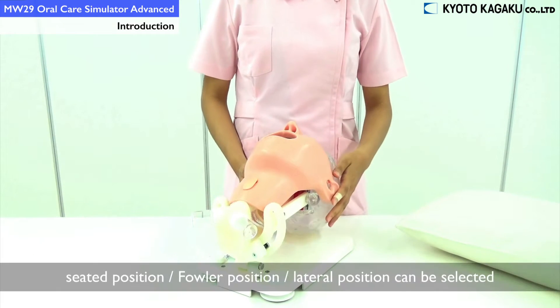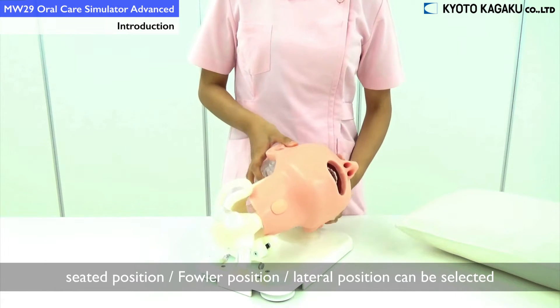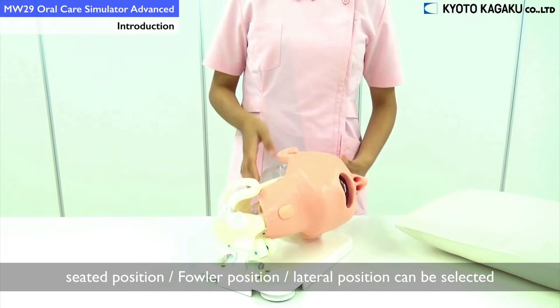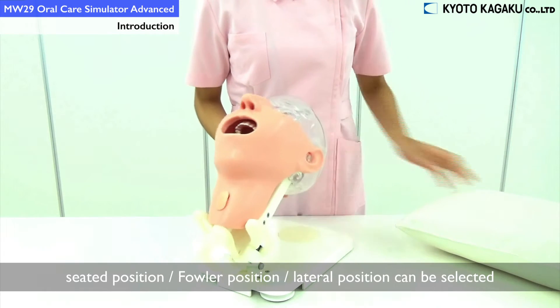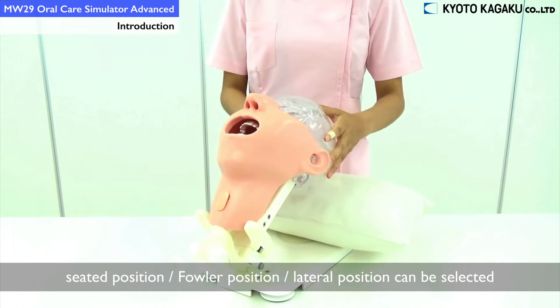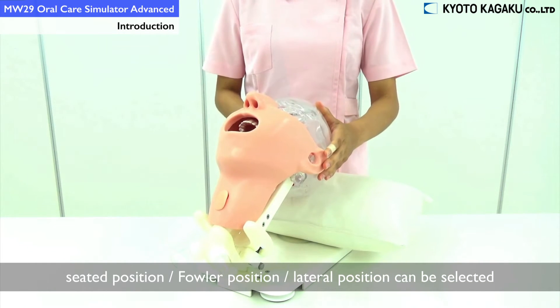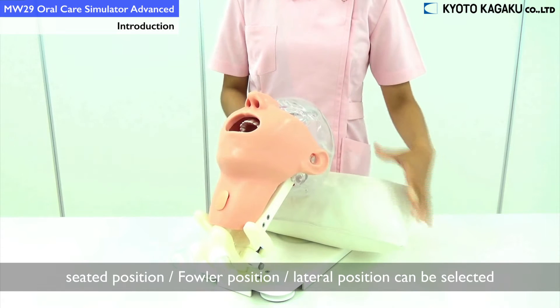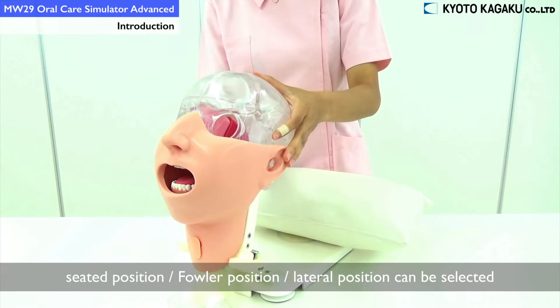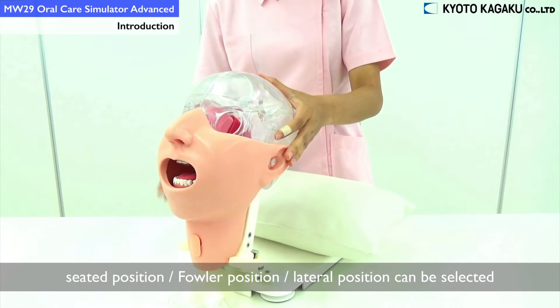There are a few positions you could adjust with this model. The first one is as if the patient is lying on a bedside. The next one is when the patient is half lying down with a pillow. And the last one is the sitting position where the patient is sitting down on the wheelchair.